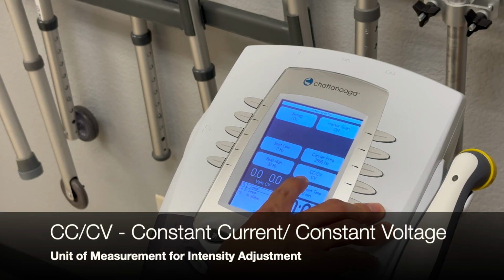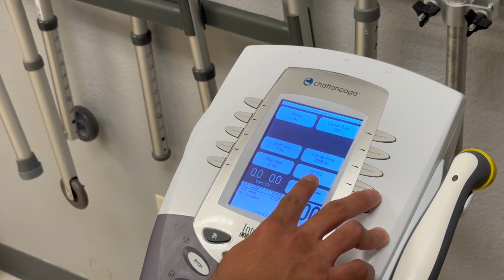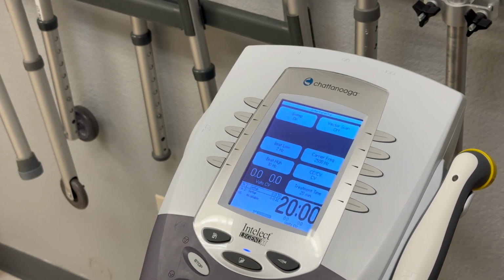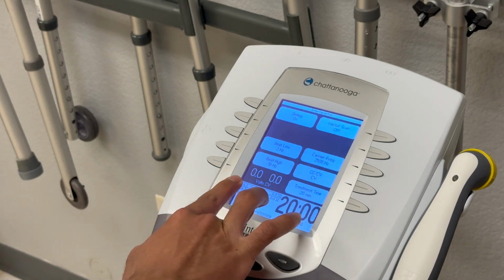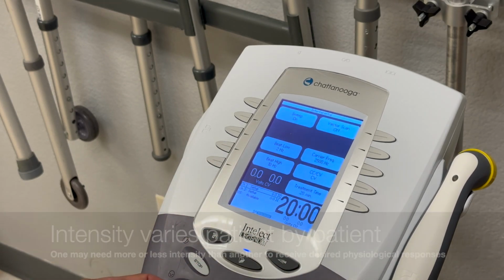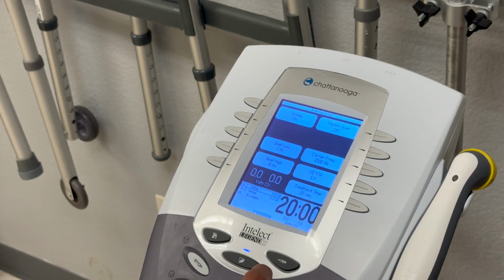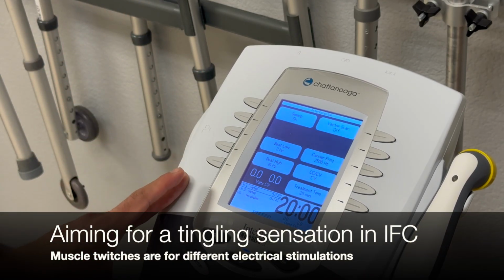Constant voltage or constant current, the CC/CV. This is pretty much a unit of measurement. We'll go ahead with constant voltage for our unit of measurement, as we're going to be able to turn this dial up into having different intensity levels to where I'll be able to start feeling the intensity. Intensity is going to be varying between different patients. So this is something that you'll want to adjust and see feedback with the patient to see if they are responding with the tingling sensation or muscle twitch sensations. In here we're aiming for tingling sensations. I'll get to that a bit more.